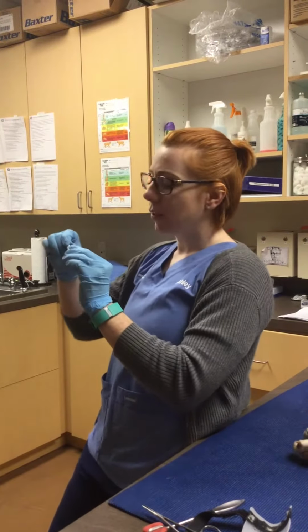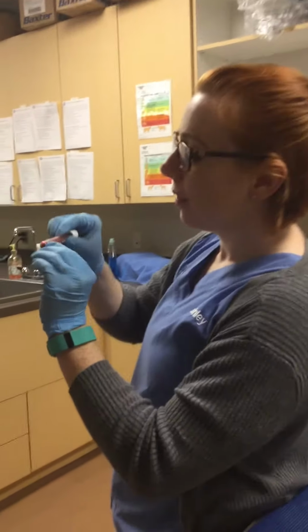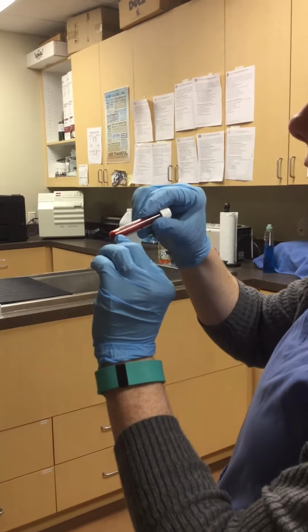Minutes. So you can see right at 3 minutes and 5 seconds there's a clot, a tiny little clot forming.